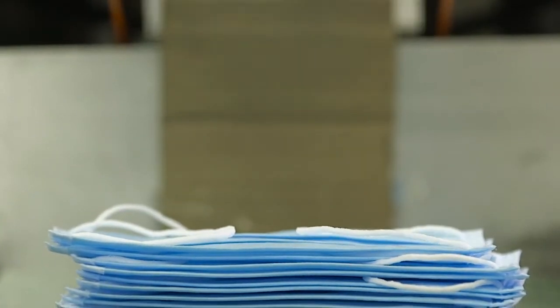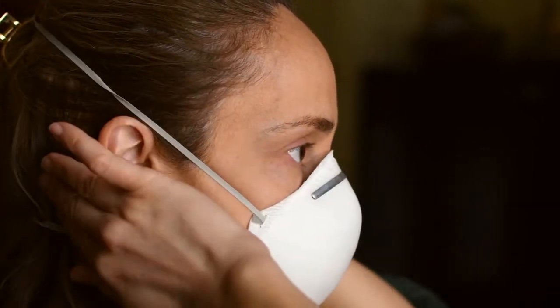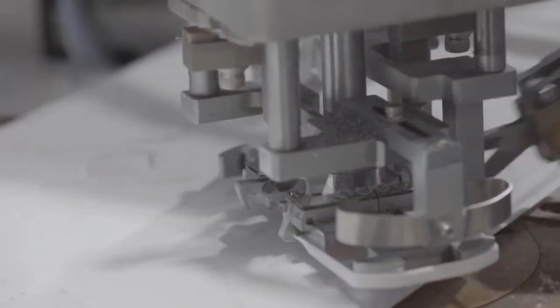With the current pandemic, some things are identified, especially with supply chain and the reliance on foreign supply chains to give us some of our PPE. You can imagine with this pandemic, everybody wanted to keep their PPE close and not send it out externally.